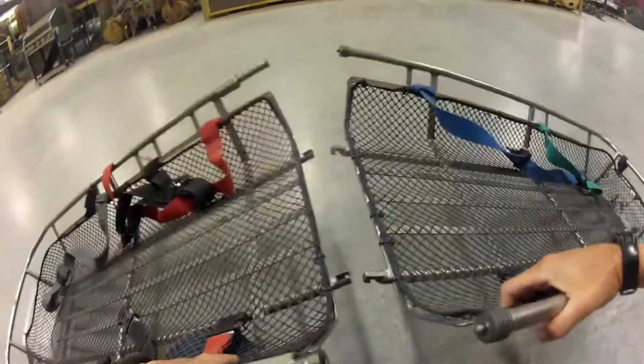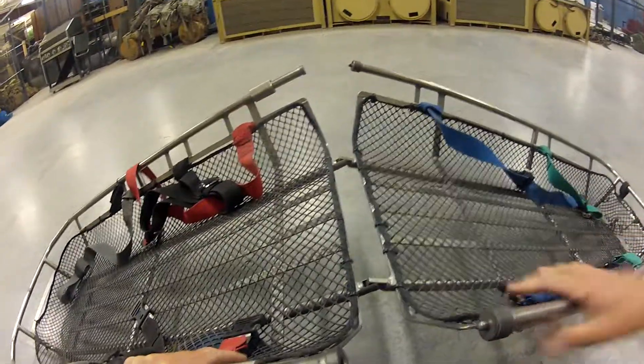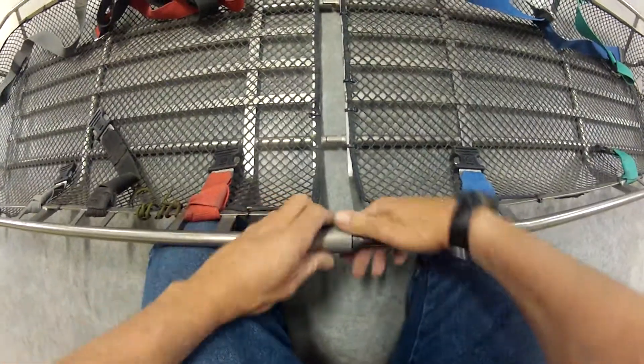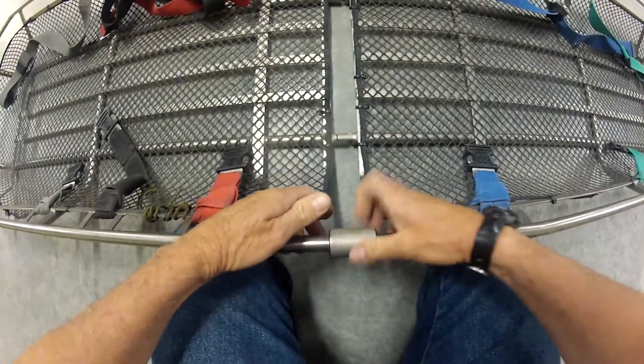I like to pick this up and align the two hooks, then lower it down so the two sides match up on both sides. Just align that little peg so it goes inside, and then just knurl it together so that it's tight.